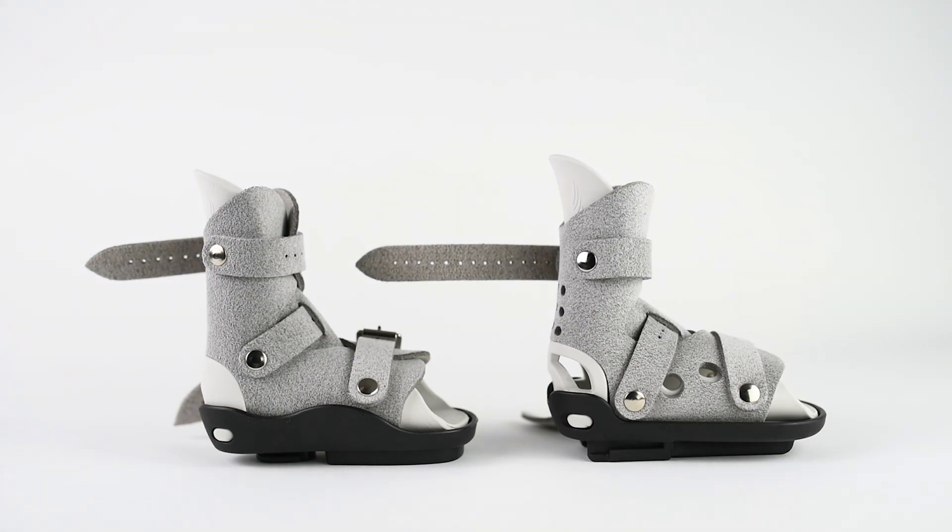On the left is the original Lazarus, on the right is the new Lazarus. The first difference you'll see is the side wall — the sole plate is different on the side here. We've removed the extra plastic around the edge, because patients with wide feet will overlap the edge of the boot, and it won't cause any pressure against the plastic. Because we've lowered the side wall, it's allowed us to move the strap down to a much lower fixation point, so there's less stretch on the strap and less movement.